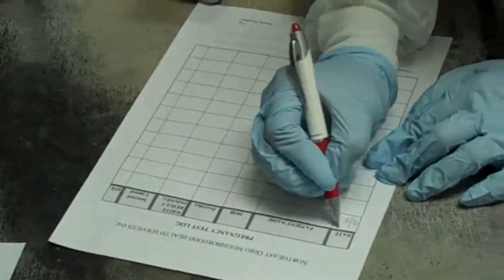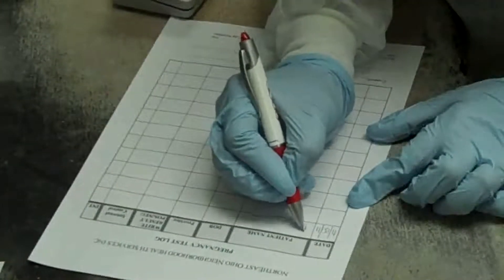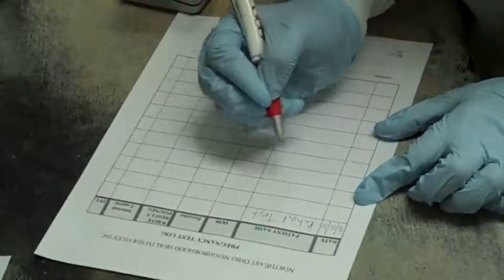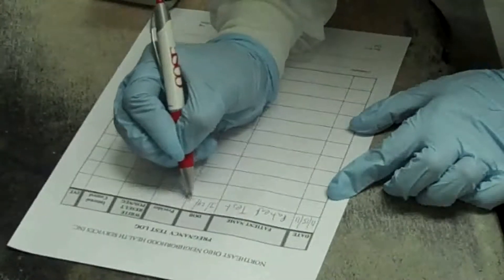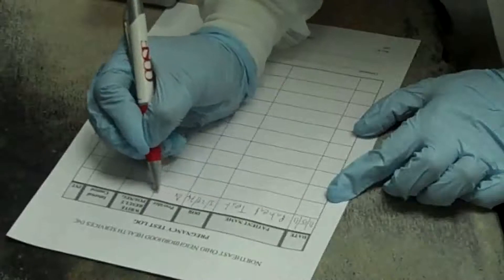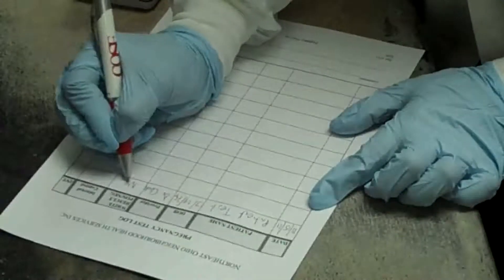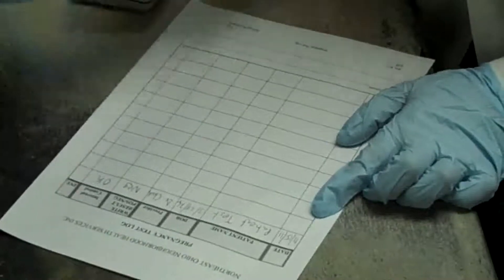We document this on our pregnancy test log. Indicate the test date — 1115 — the patient last name and first name. In this case, patient test. The patient's date of birth, which is 3/29/1974. The provider, which is indicated on our label. The patient result in this case is negative, and your internal control — mark as okay — then initial your result.